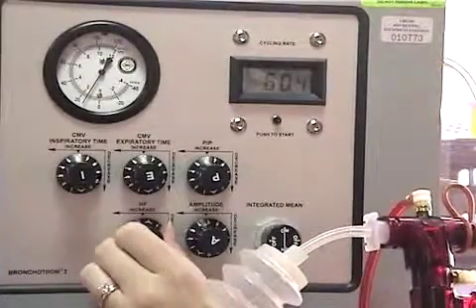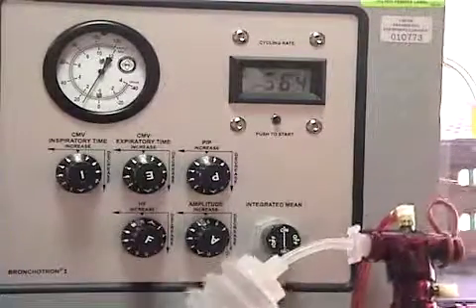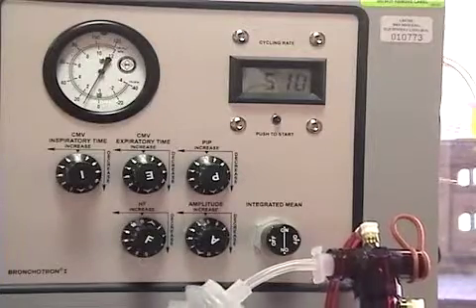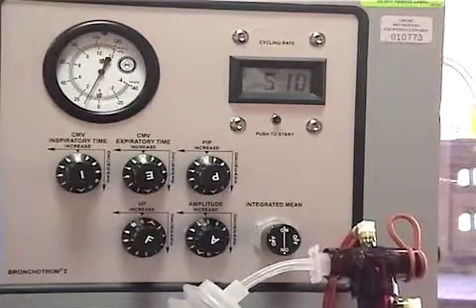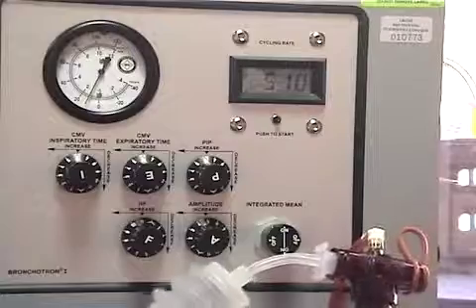At closing, remember that frequency in high-frequency ventilation is typically expressed in Hertz, which is total rate divided by 60. Thank you.